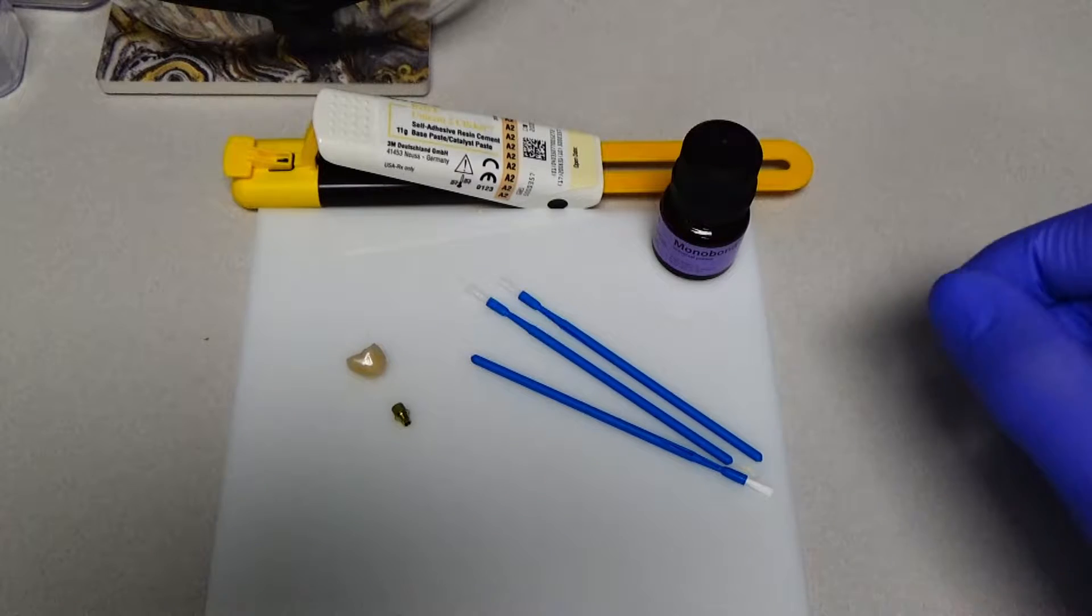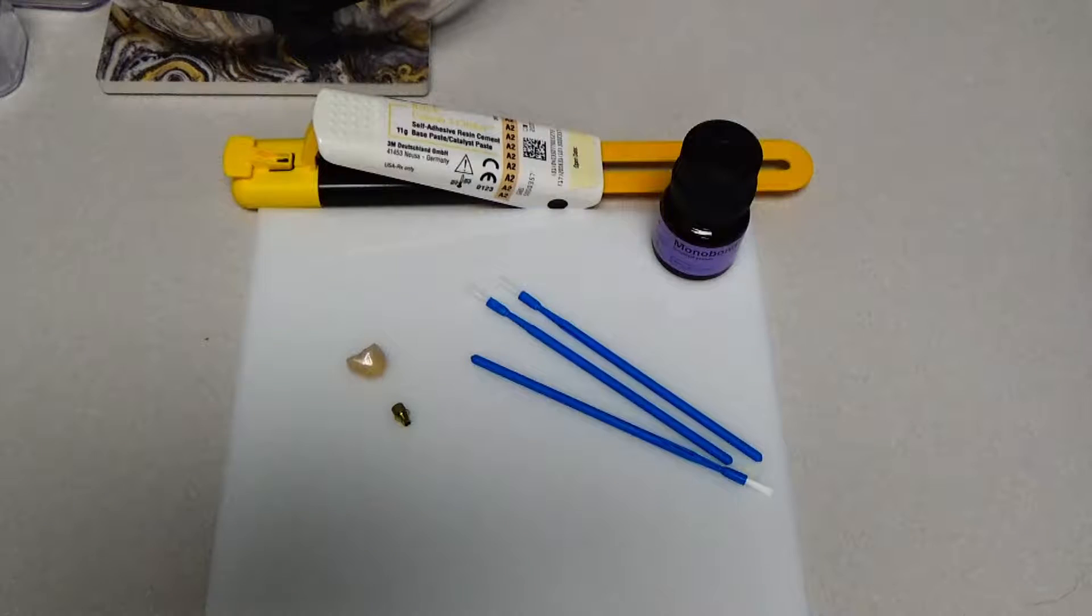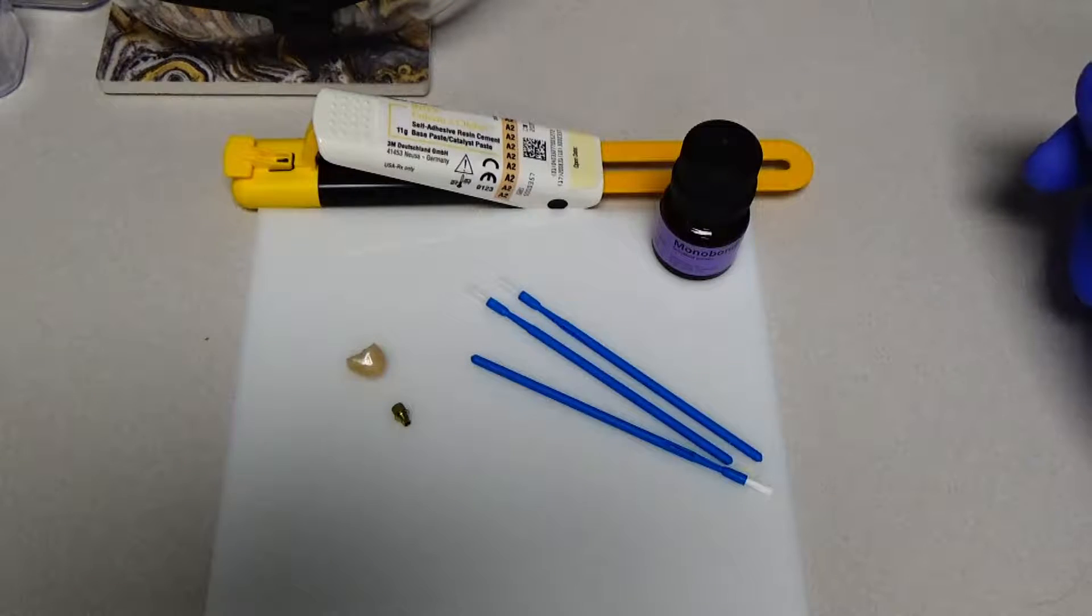Hello, my name is Dr. John Bowie. I'm a prosthodontist in Midlothian, Texas, and today I'm going to show and demonstrate how to properly bond a titanium insert into a zirconia crown.